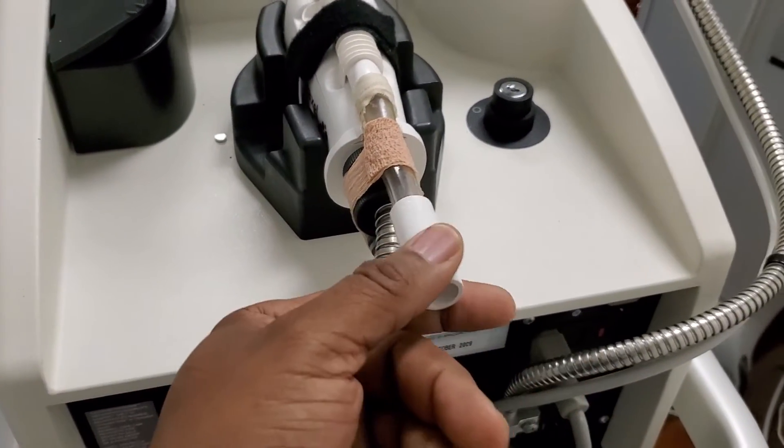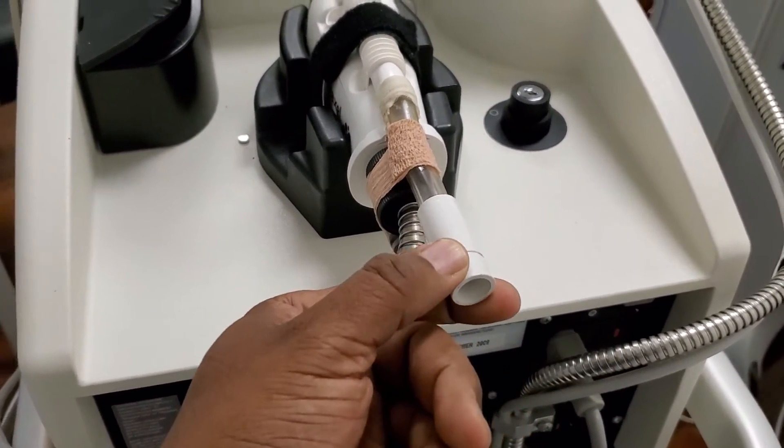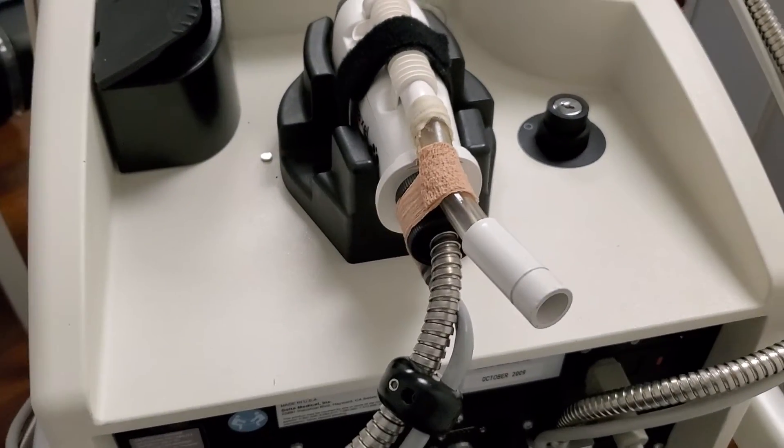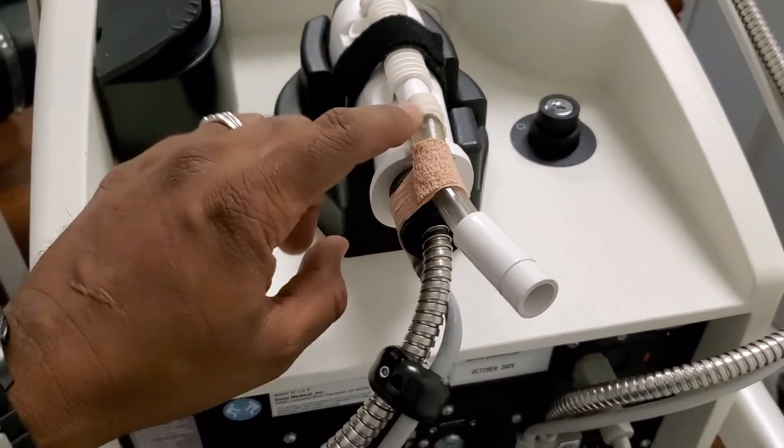If you can, please make sure that after each use, disconnect the Zimmer hose piece and that will prevent that from breaking.